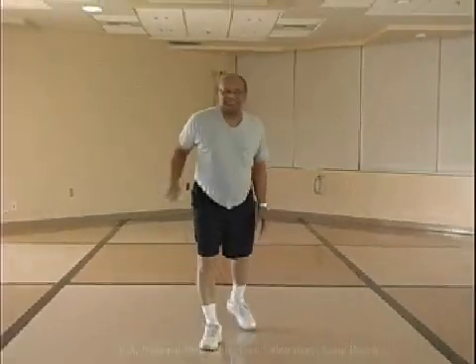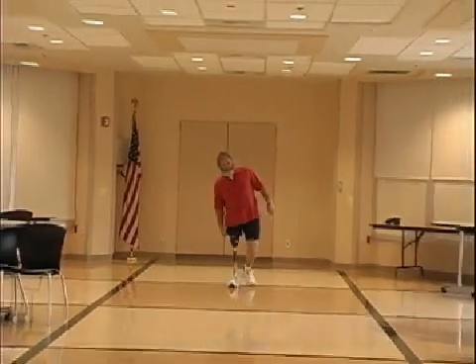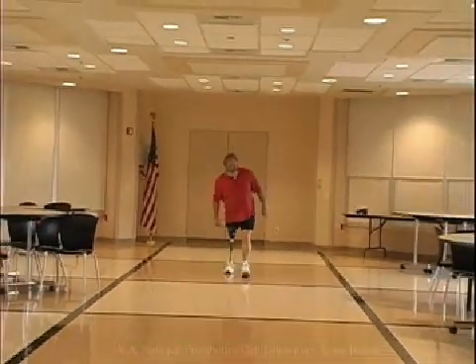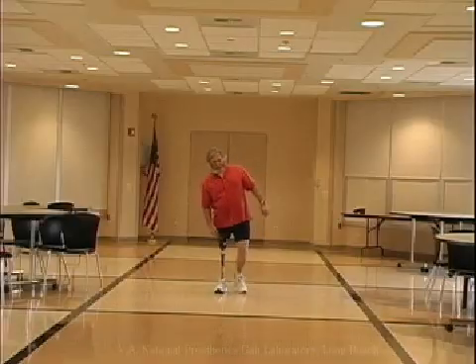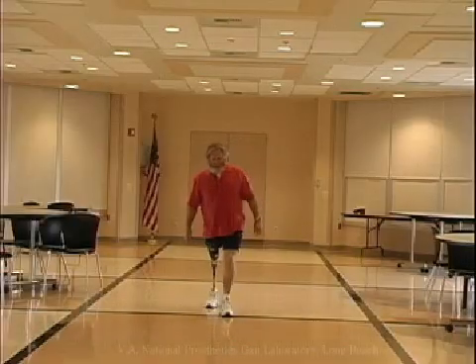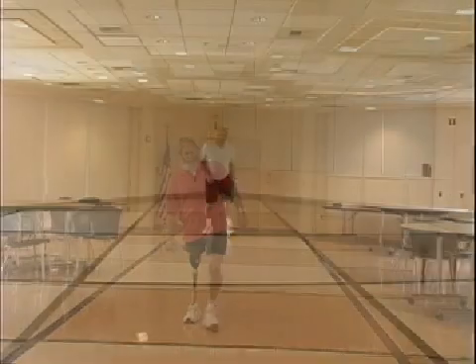In this scenario, the individual attempts to avoid pressure on the lateral distal femur. A longer residual femur allows pressure to be borne over a greater surface area, which results in decreased pressure over the distal residual femur.